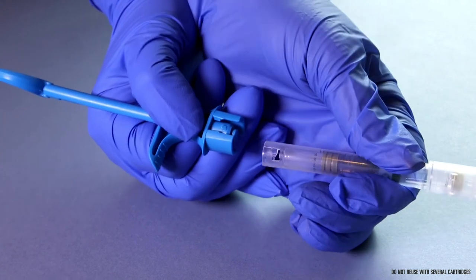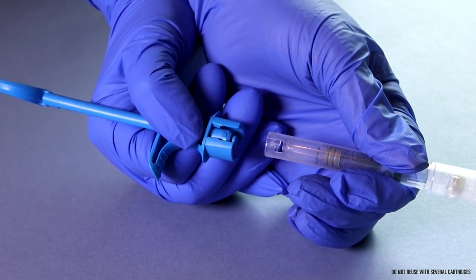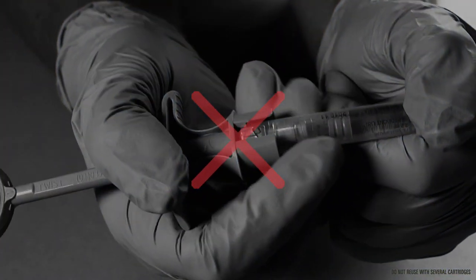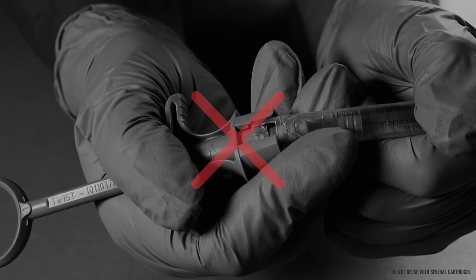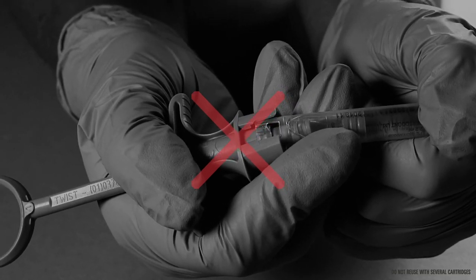Do not attempt to separate the handle from the syringe without first unlocking. Do not attempt to snap the syringe out of the handle by bending. Ensure that it's unlocked and pulled straight apart.